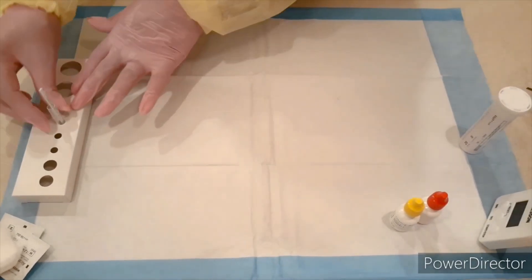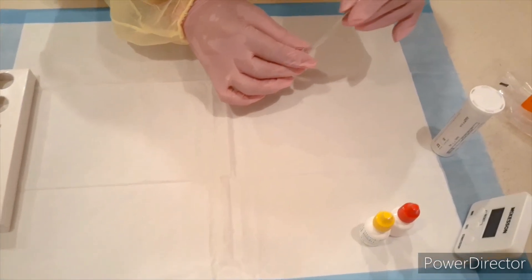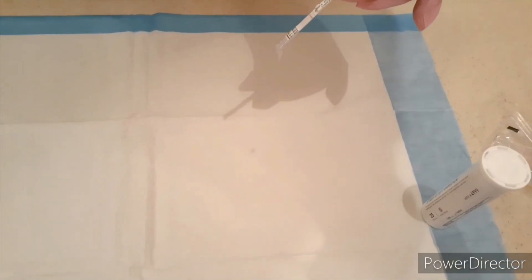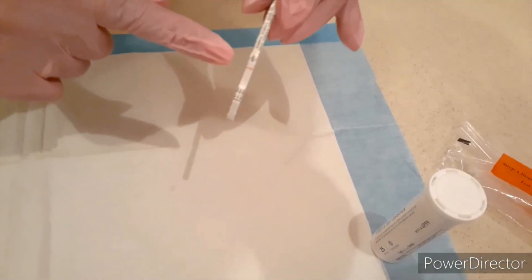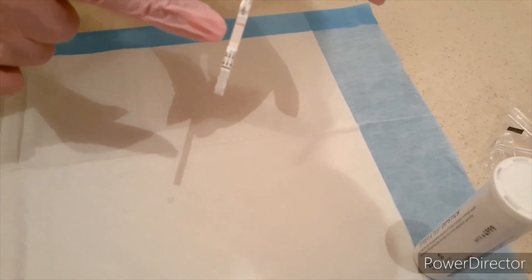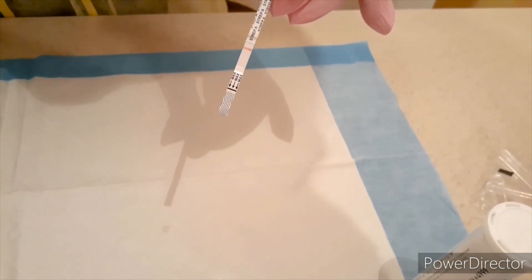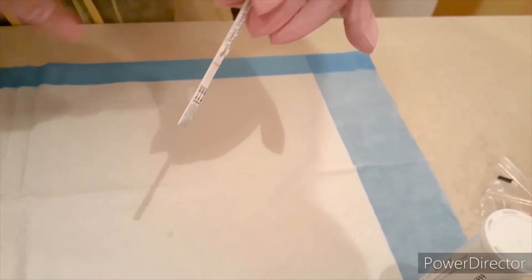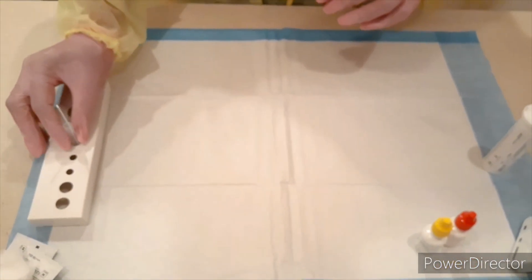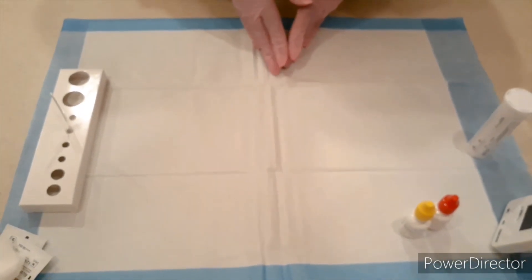Our timer has went off — five minutes has passed. Now I can take a look at our results. I'm just going to pull this out and dab off any excess, and as you can see, we have a negative result. This first line is our control. The second line, if there was a second line, would be a positive result. So it's safe to go ahead and document that this patient has a negative strep result. I like to hang on to my samples to give my physician a chance to come in and take a look at it.